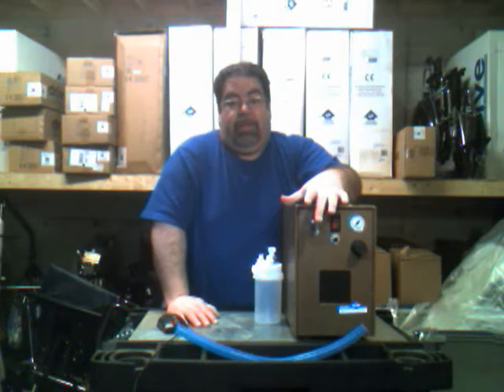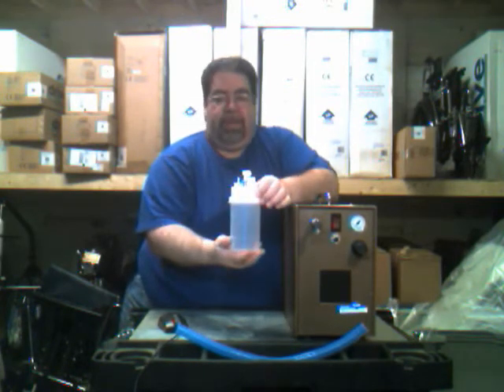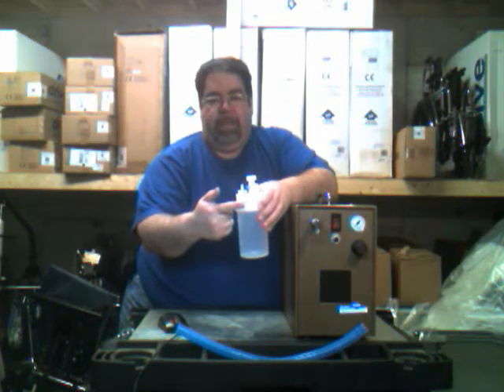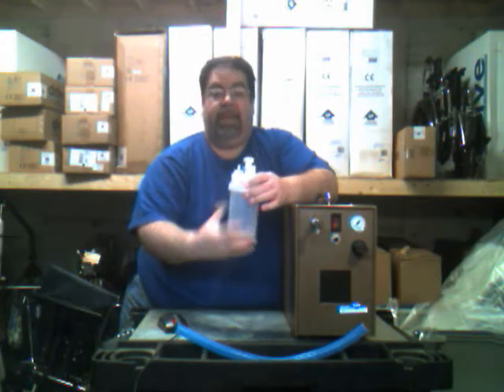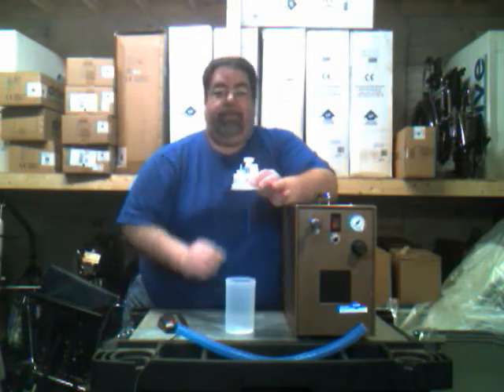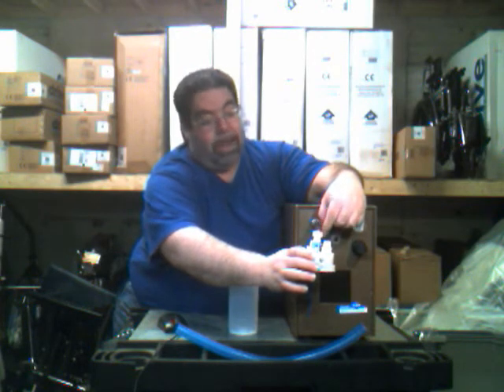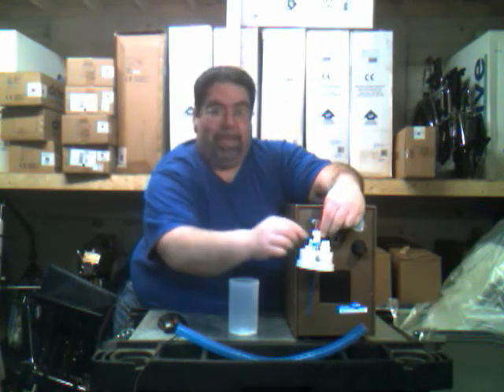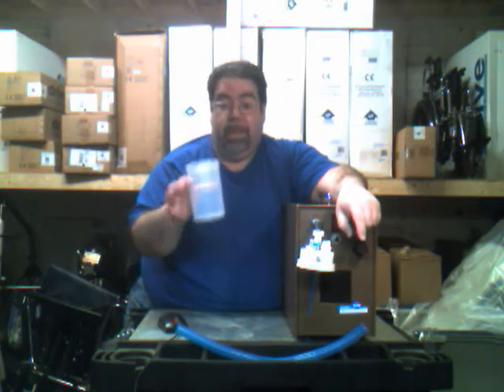Going back to the adapter — the water bottle or jet nebulizer that hooks up to it looks like this. It has a place to adjust for humidification, one place to attach the corrugated tubing, and one place to attach it to the machine. We recommend taking off the opaque part of the jet nebulizer first, then carefully screwing the lid to the machine, making sure the thread is straight. It should go on with one finger until you feel resistance, then just tighten it up a little bit.